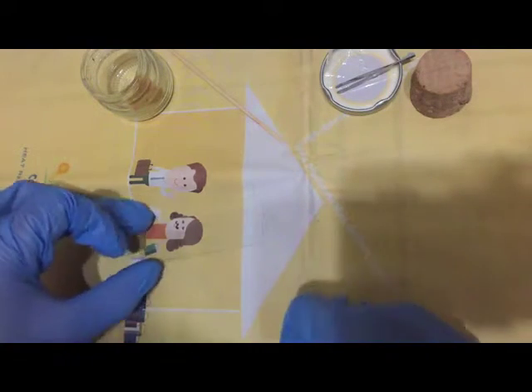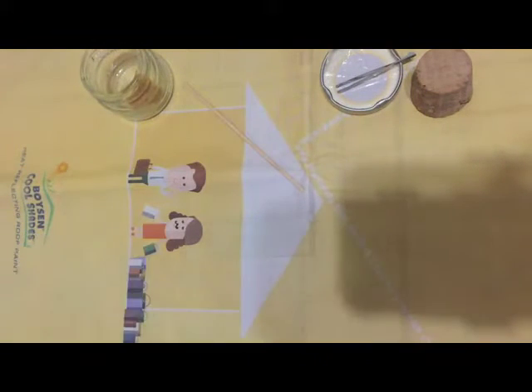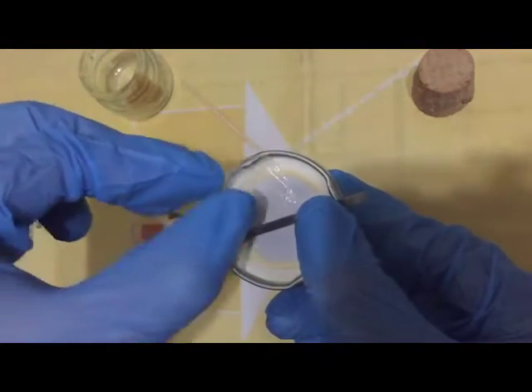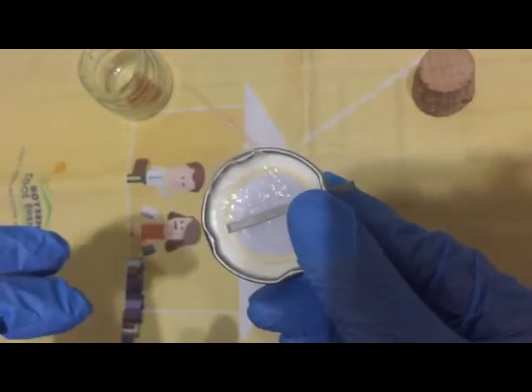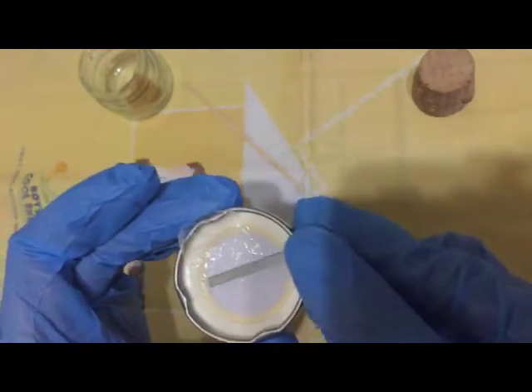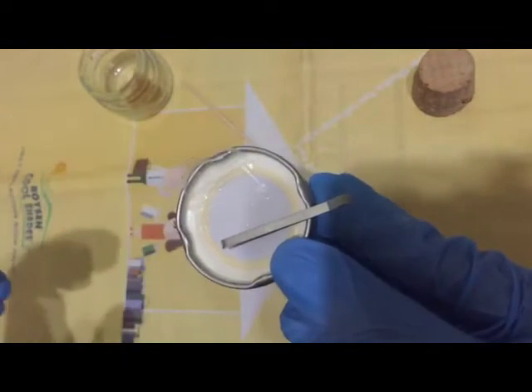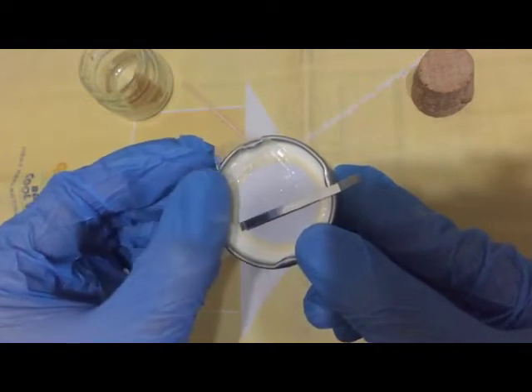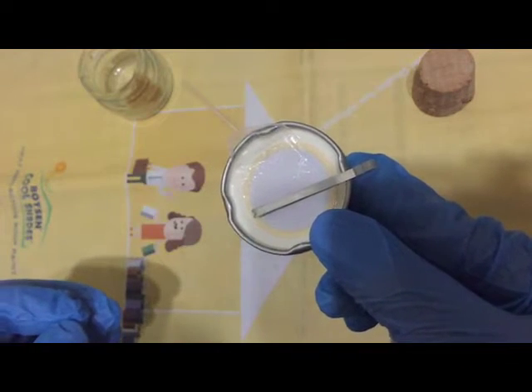...again, one microscope slide, an applicator stick, hydrophilic cellophane cut into the size of a cover slip. We have here cellophane, transparent cellophane cut into the size of your cover slip. Of course, we have your tweezers here. Hopefully, you can find non-toothed tweezers or forceps.